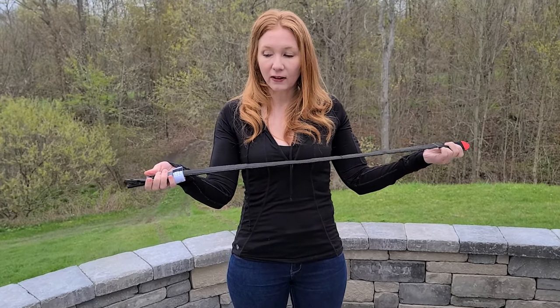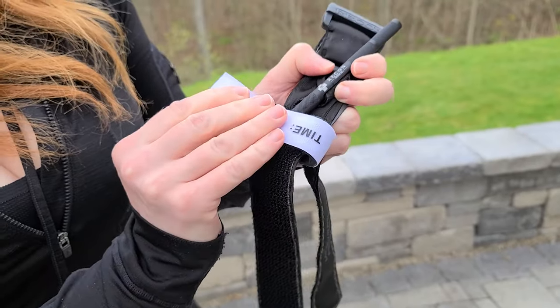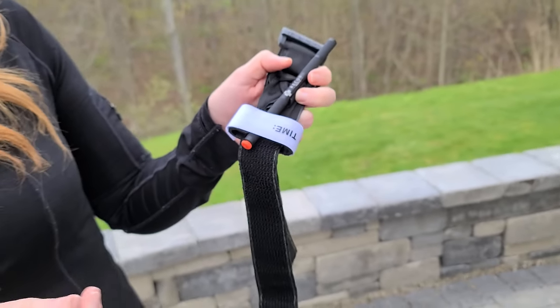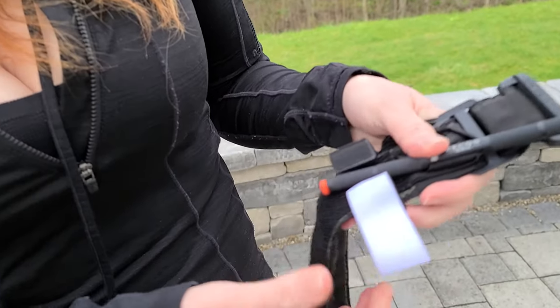First things first, we want to start off with it all flat and stretched out. One thing people often like to do is take this timestamp tab and leave it covering this piece — but if you think about it, with muddy or bloody hands, this is going to be really hard to find. Also, everyone's always calm, cool, and collected, and they think they could do it easily — but add stress to it and all of a sudden your fine motor skills aren't so great. So we want to make this easy. The first thing we're going to do is take this and move it out of the way, and I like to put it right here and make a tab that's easy to grab.